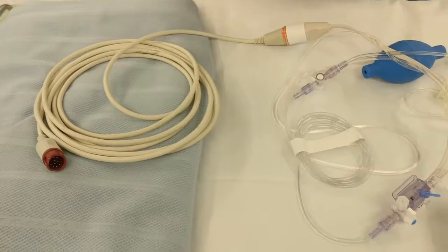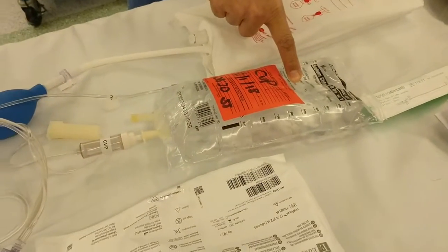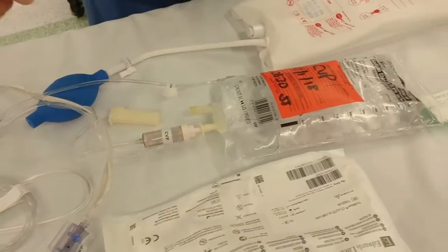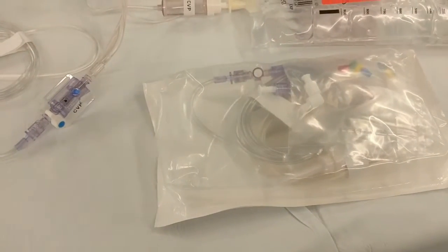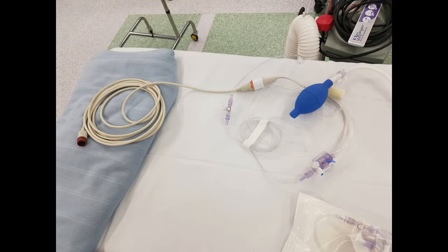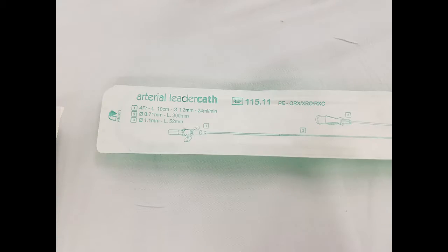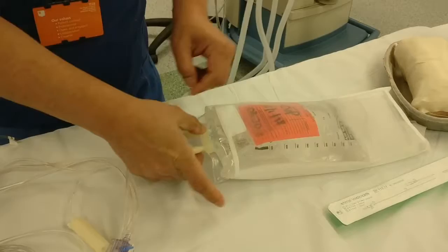The equipment required to monitor compartment pressures includes a pressure bag, a 1 litre bag of saline, a central venous pressure kit including a transducer, and a cable to connect that kit to an anaesthetic monitor. In this video, an arterial catheter is shown, however we would recommend the use of an 18 gauge or green Venflon. Because an anaesthetic monitor is required, an ODP is desirable.